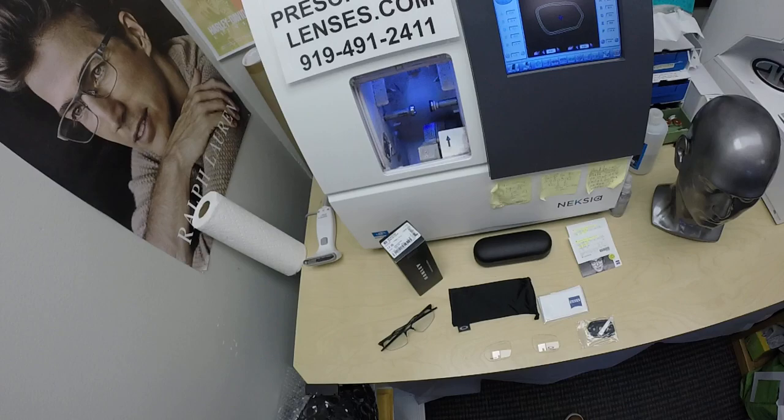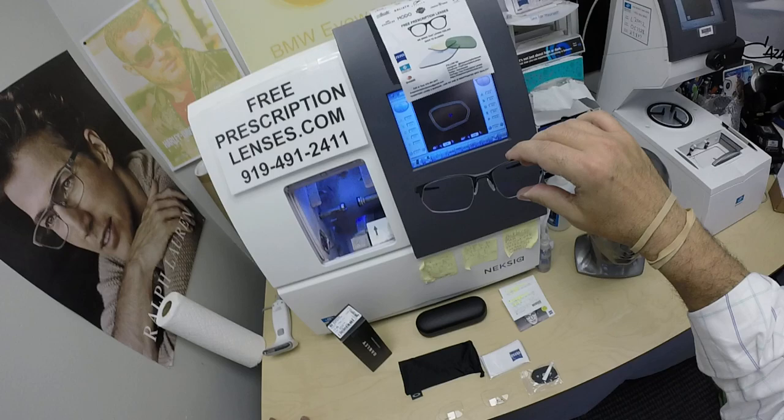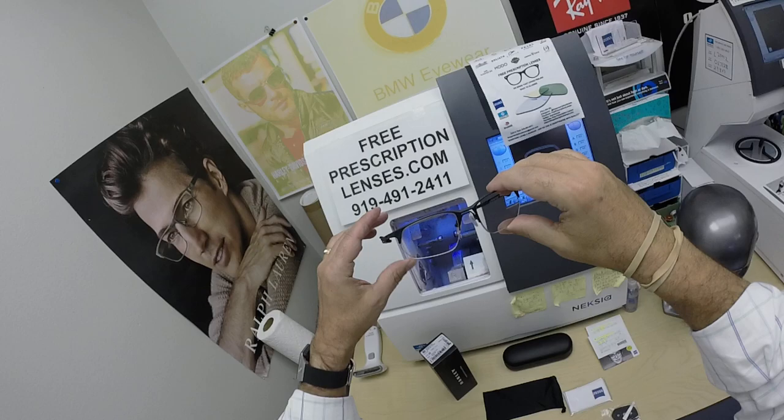My name is C. Moore Better — call me Moe, Moe Better — because I'm going to have you seeing Moe Better, and show everyone else how I bring that loving feeling back to glasses. And actually, I should have said a very special thank you. This is Danny's third purchase from me within six weeks.